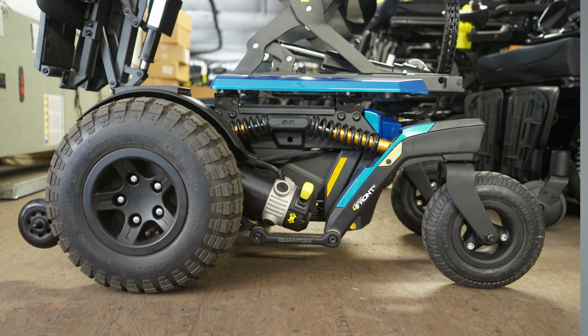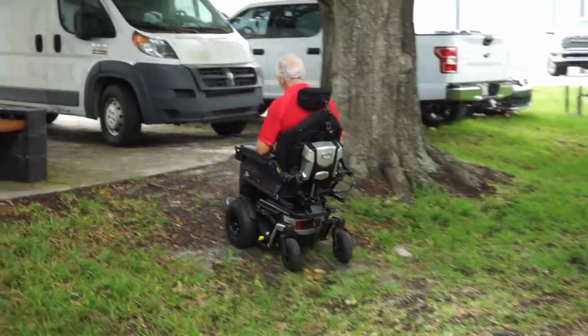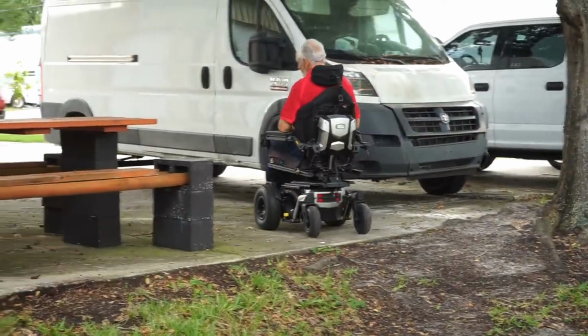And you're going to notice it's going to have wheels in the front of the drive wheels, but they're actually anti-tip wheels. So they're going to be elevated off the ground. That's only for stability purposes. If you went down a slope that was not intended for what they recommend for this type of unit, it would stop you from tipping over forwards.